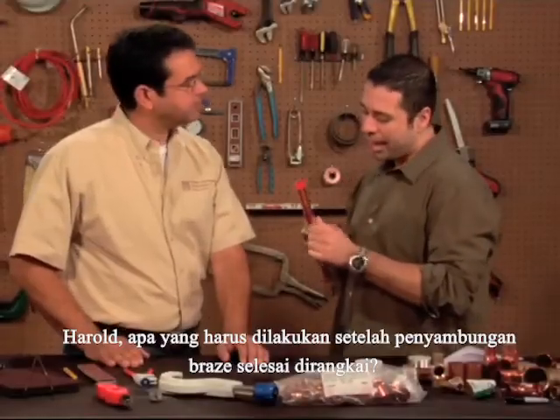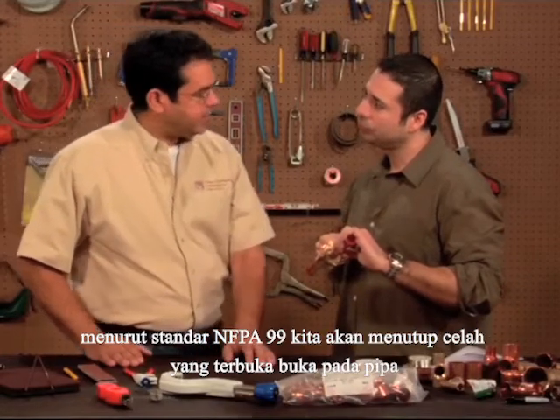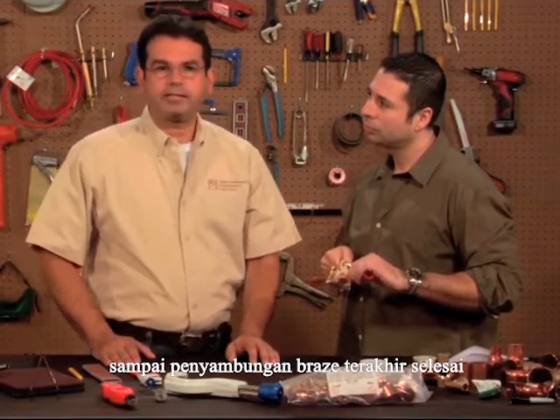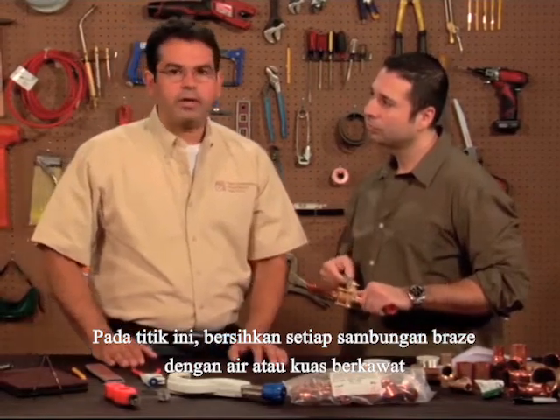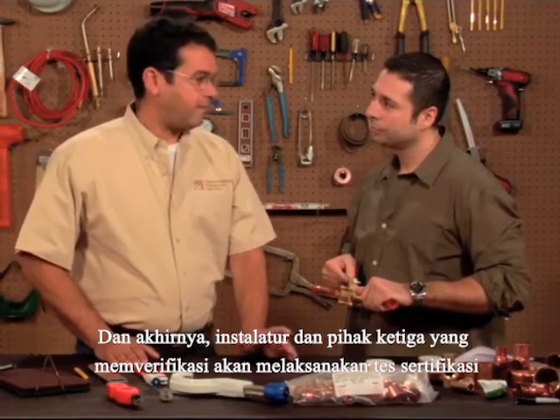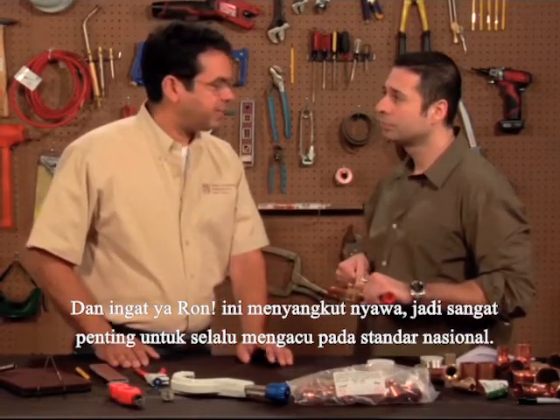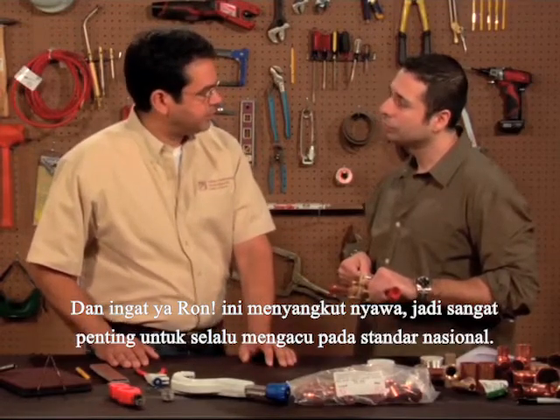Harold, what should be done after the brazed joints are completed? Well, according to NFPA 99, seal the opening to prevent any oxidation and maintain a nitrogen atmosphere until the last brazed joint is complete. At this point, clean each brazed joint with water or a wire brush to remove any oxides on the outside of the tube. Finally, installers and third-party verifiers should complete certification tests. Now remember, Ron, lives are at stake here, so it's very important to adhere to local or national codes.